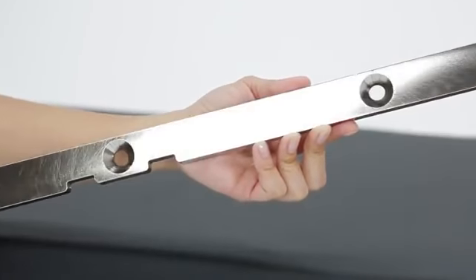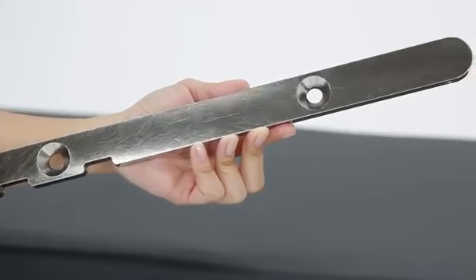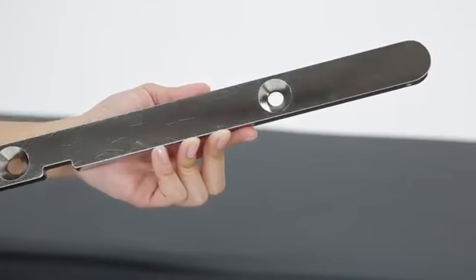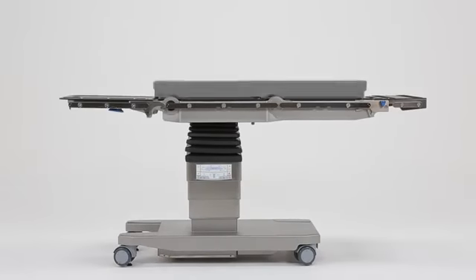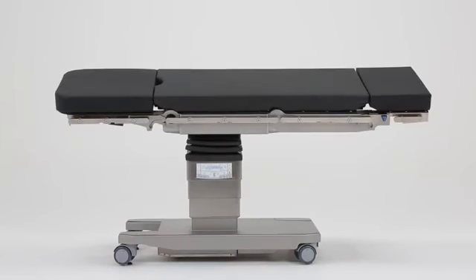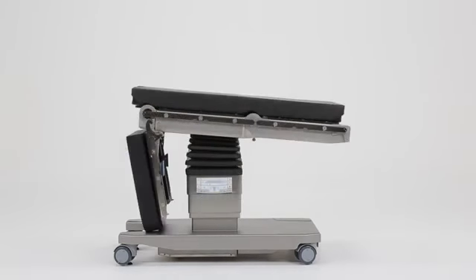Due to the demand for lighter components, Trumpf incorporated aircraft-grade aluminum into its side rails to reduce weight by 25%. Trumpf has designed a family of components to allow the user to achieve all positioning requirements for any advanced surgical application.